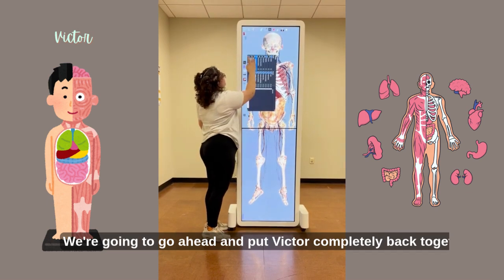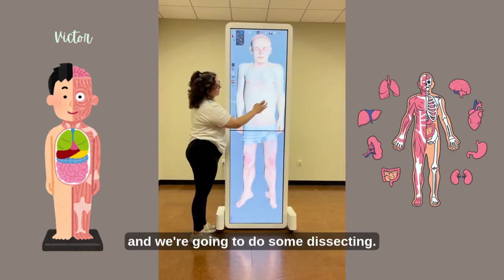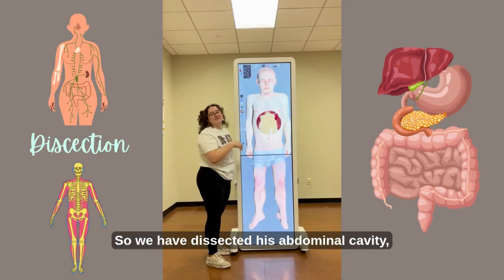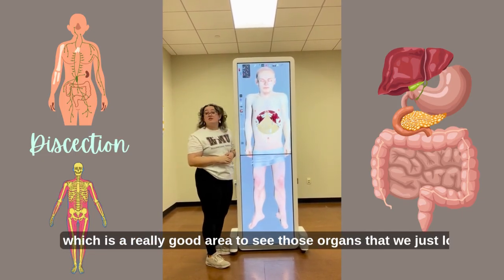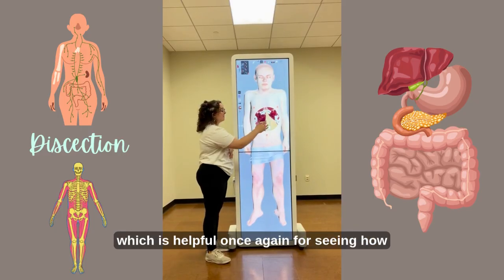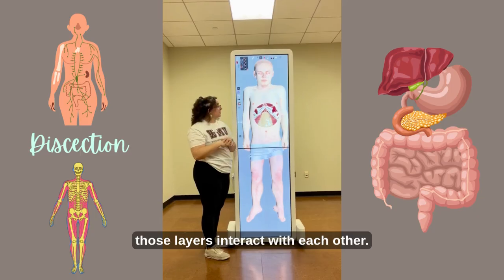We're going to go ahead and put Victor completely back together, and we're going to do some dissecting. So we have dissected his abdominal cavity, which is a really good area to see those organs that we just looked at before. As I am hitting each structure, it does label what structure you took away, which is helpful once again for seeing how those layers interact with each other.